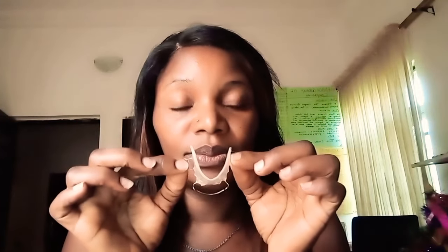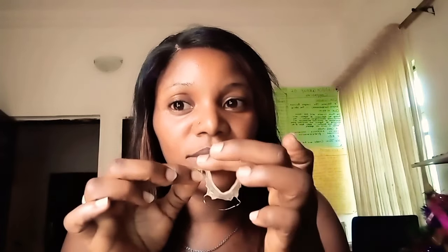This is what I'm saying — no matter how I wear it, there's no way I can get it right. I'm learning now. You see this one here — this is the one that's supposed to be down here. You can't even see the shape, let me show you. This one here — there is no way it's going to work wearing it like this.